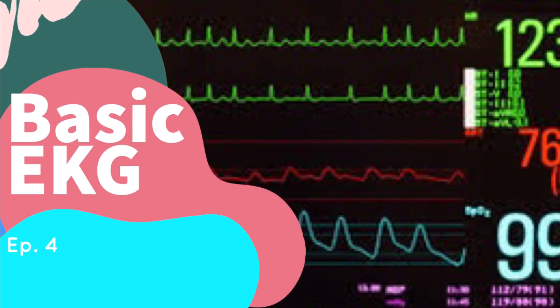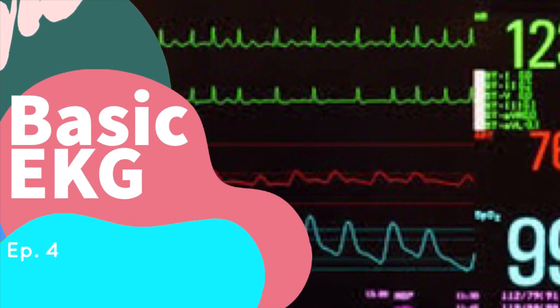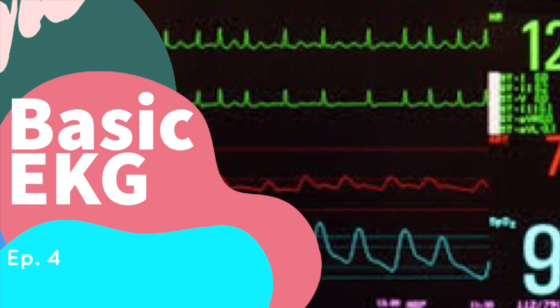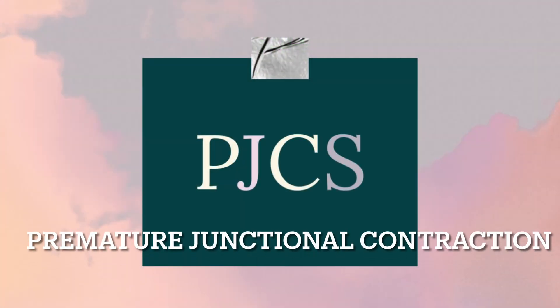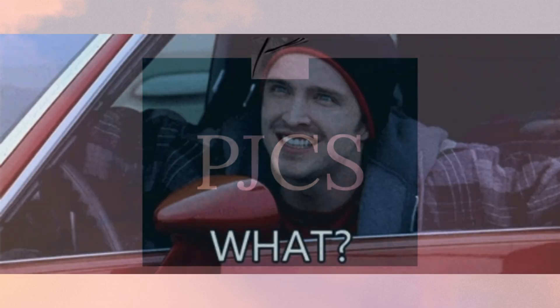What's up my telemetry babes? Welcome back to Basic EKG episode 4 with Chickgirl Angel. Today we'll be learning about PJCs, which stands for premature junctional contractions.